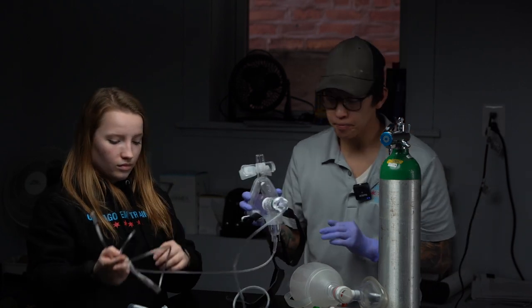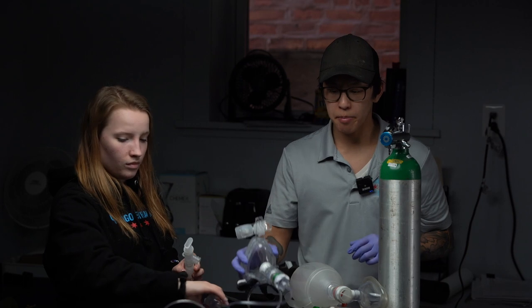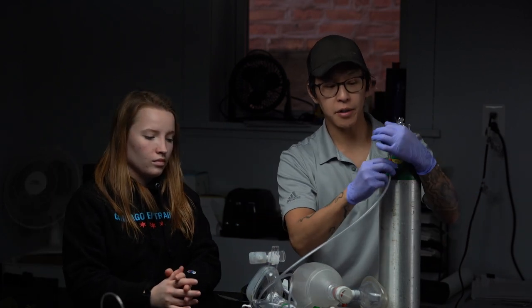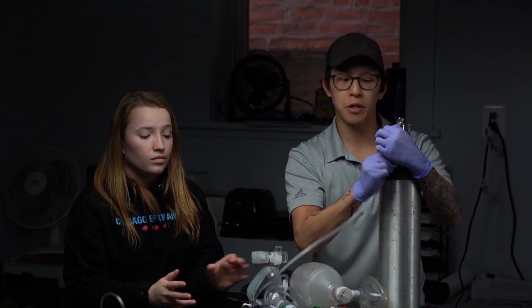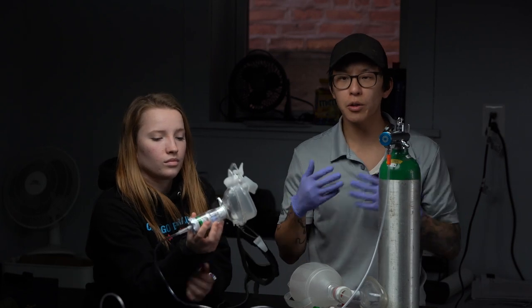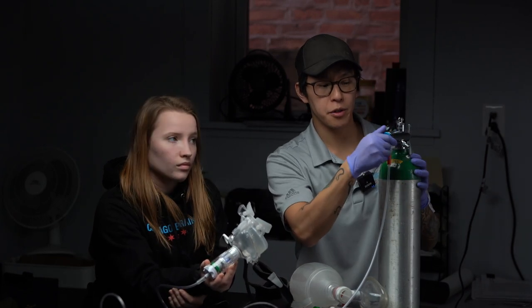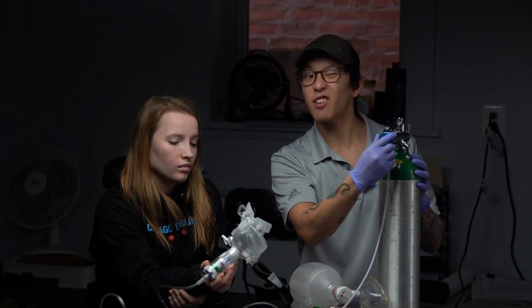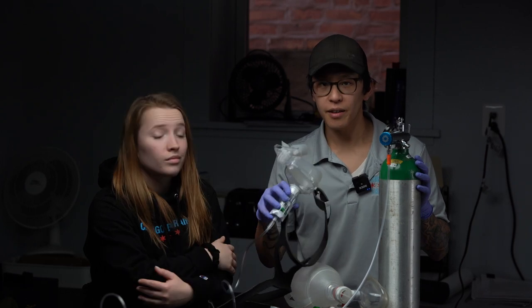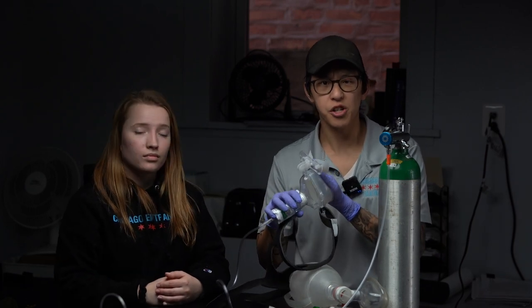Remember, the nebulizer kit is always at 6 liters per minute. Now, if it's your patient's first time with CPAP, as soon as you apply it at 10 liters per minute on the regulator, it's very loud and there's a lot of pressure coming at the patient. Let's just hear how loud it is. It's very loud, and if I put my hand on it, it's a lot of pressure, actually.